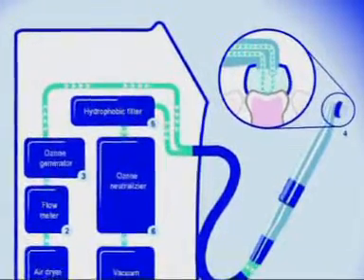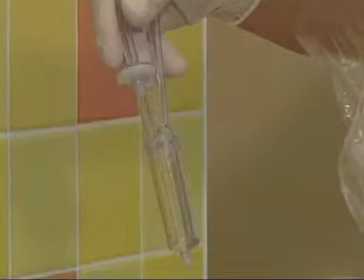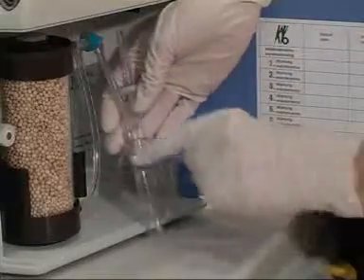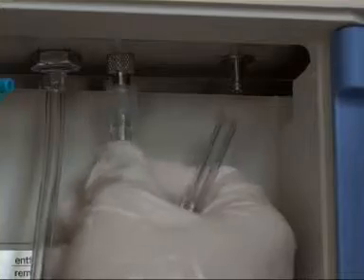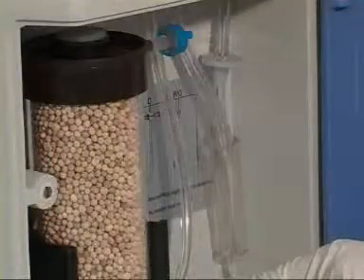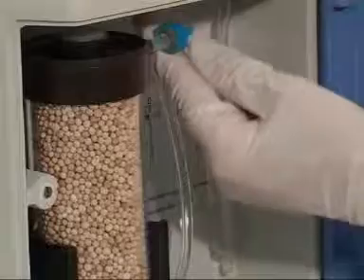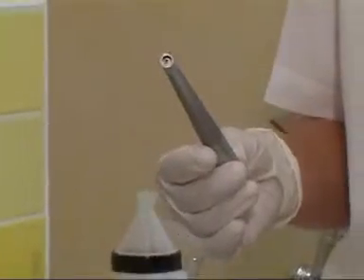After treatment, the ozone is drawn off and converted back into oxygen. Saliva and other liquids are first separated and caught in a moisture trap before the ozone is converted. To attach the moisture trap, fasten the screw cap onto the thread and fit the other end of the hose onto the connection piece. Be careful not to bend or twist the hoses.